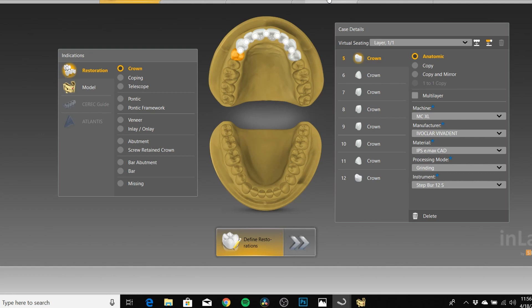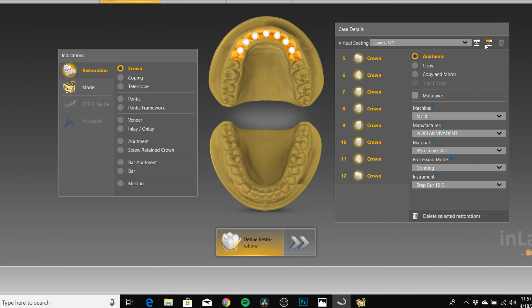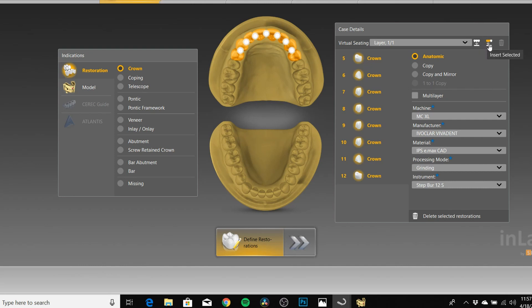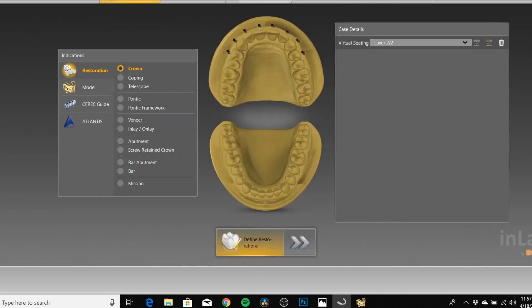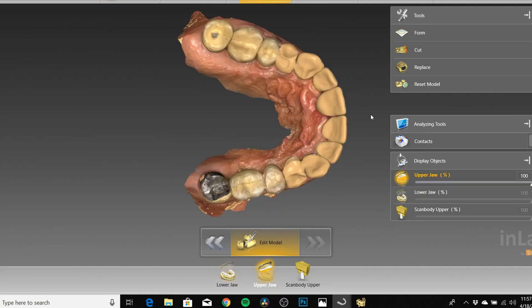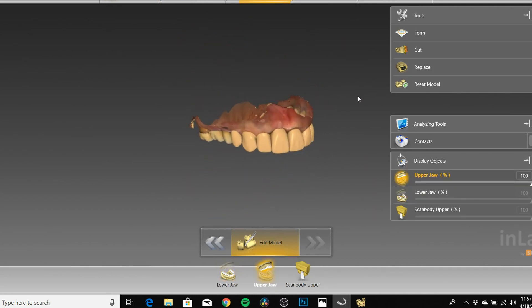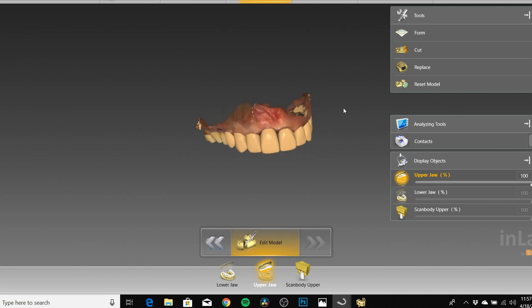Once you're in Administration and the design is where you want it with all contacts green, make sure all of these crowns are clicked — every tooth — and then you're gonna click Insert. I just go through every crown and virtually seat it. Insert Selected — 'Should instrument geometry be considered?' — I typically click No. We now have a virtual diagnostic wax-up. Everything's virtually seated and this is just about ready to print.